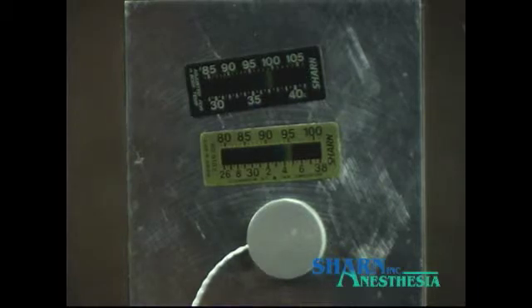Sharn forehead temperature strips consistently react faster than electronic devices and more accurately reflect the reference temperature. Compared to electronic devices, crystalline is more accurate and faster to show temperature changes, less expensive and less invasive.